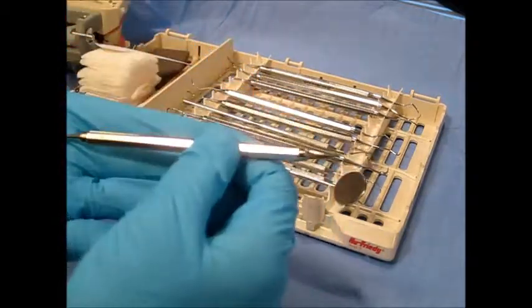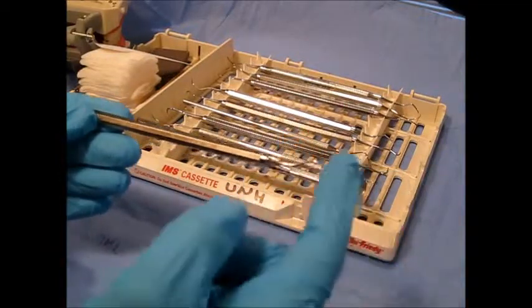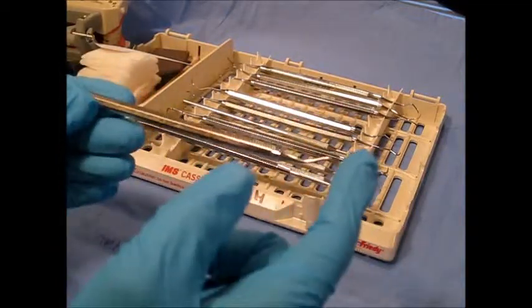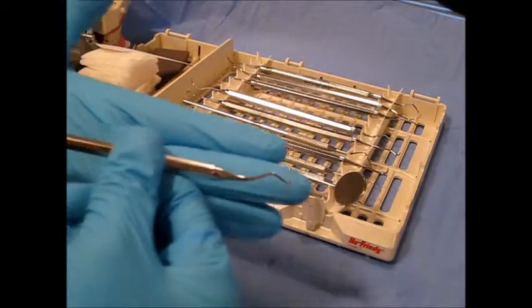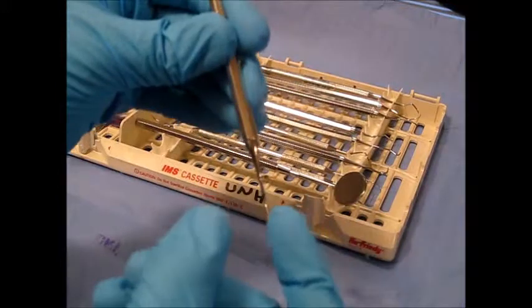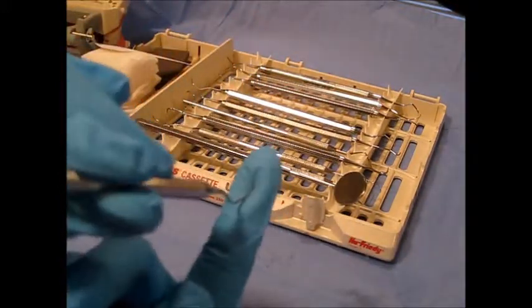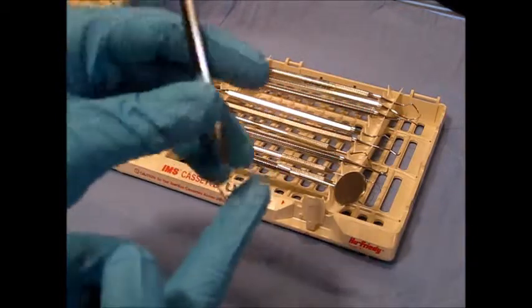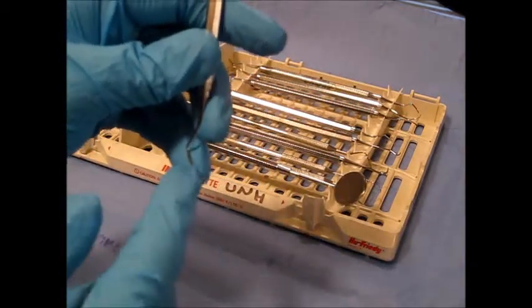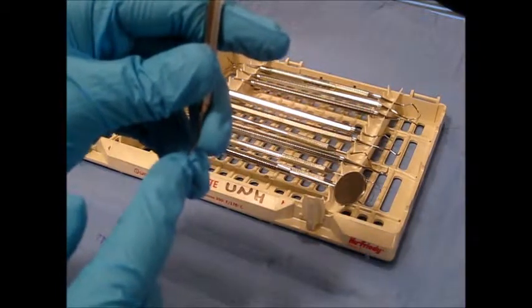It's double-ended and paired, meaning that both ends of the instrument resemble one another. It has a semicircular cross-section with a rounded toe end, and a 70-degree angle from its face to terminal shank.